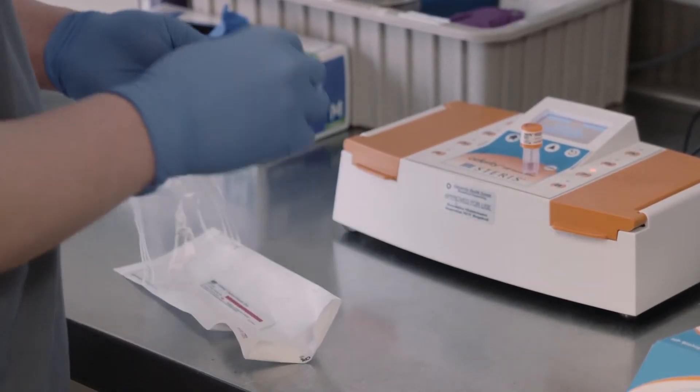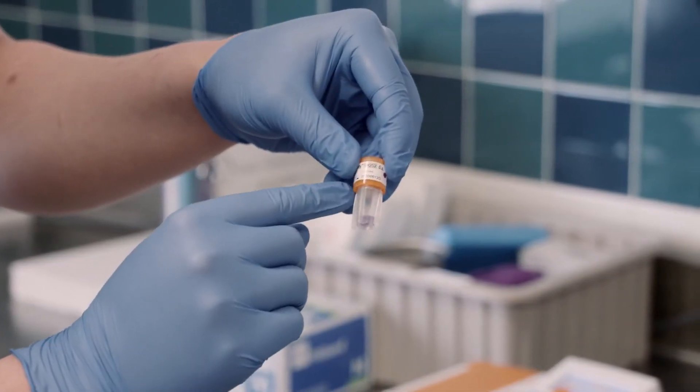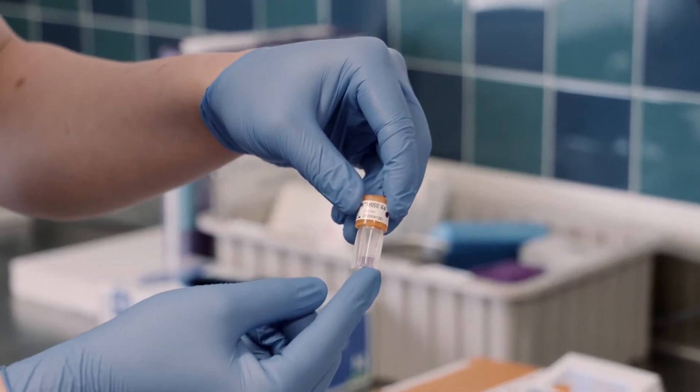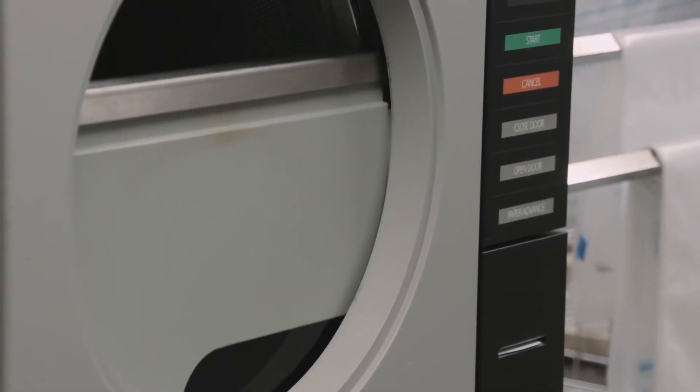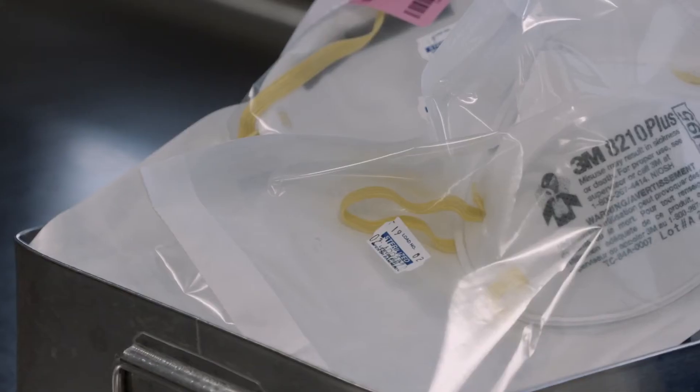A biological marker that detects contaminants is placed in the machine as well. 20 to 55 minutes later, depending on the machine, the masks are decontaminated.